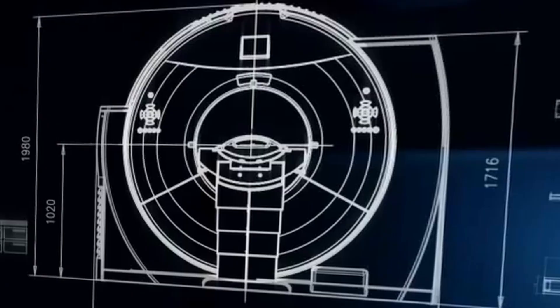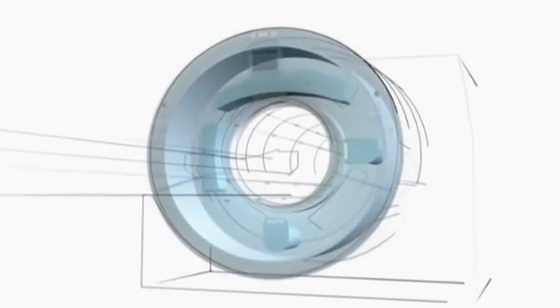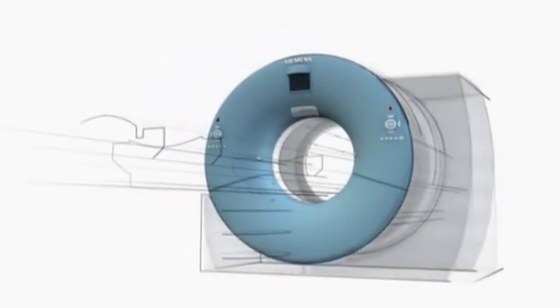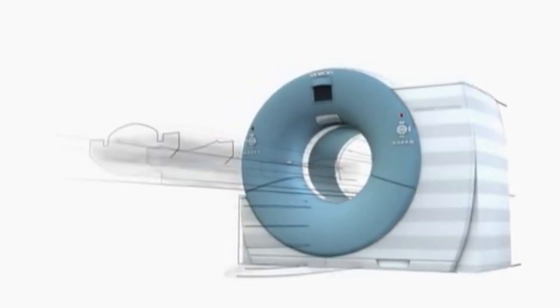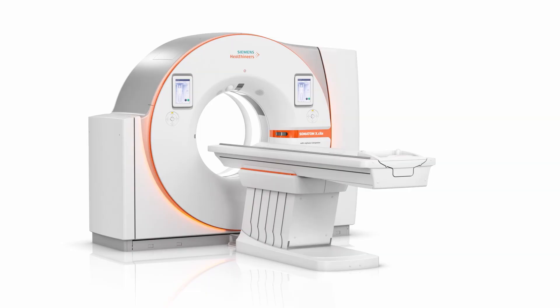In 2005, we launched the world's first computed tomography scanner with two X-ray tubes and captured the very first complete record of a beating heart in a split second.